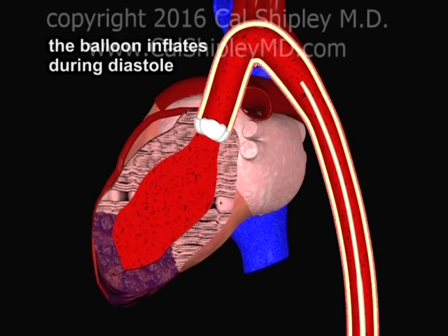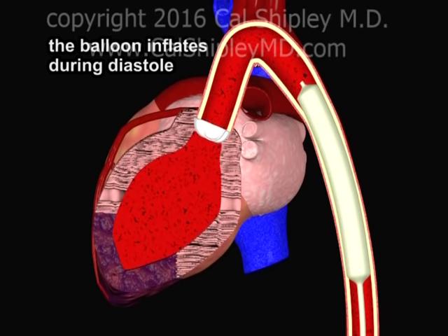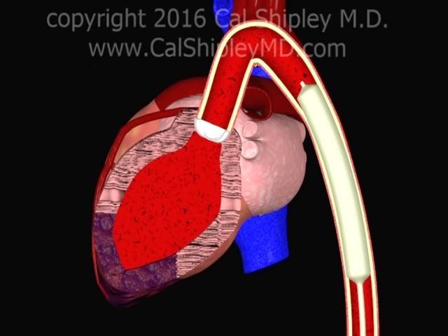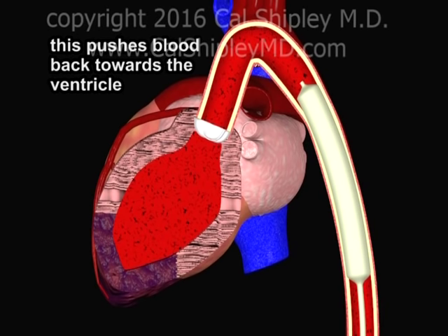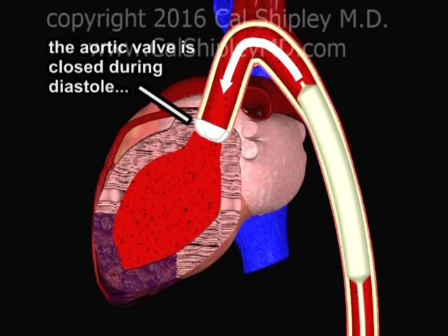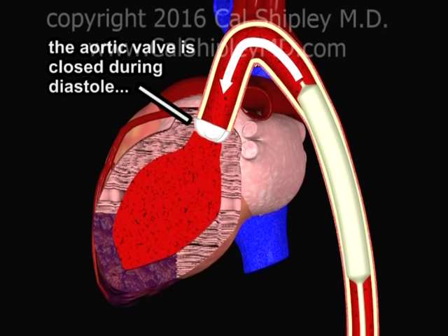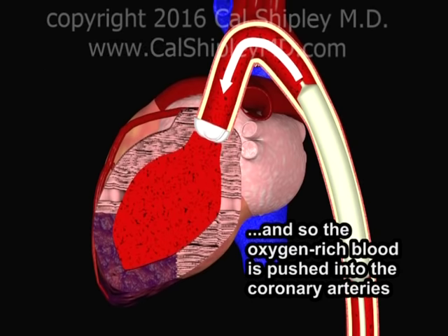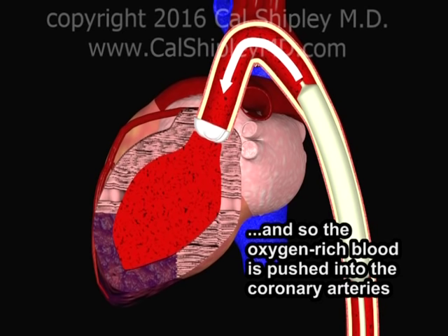During diastole, the balloon is inflated. This creates positive pressure within the aorta, pushing blood back towards the left ventricle. Because the aortic valve is closed during diastole, the blood is pushed into the coronary arteries, further improving flow to the myocardium.